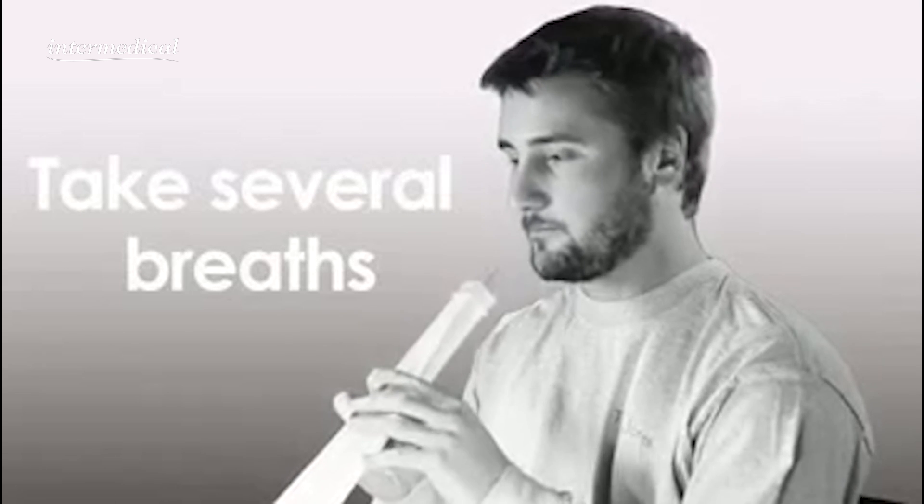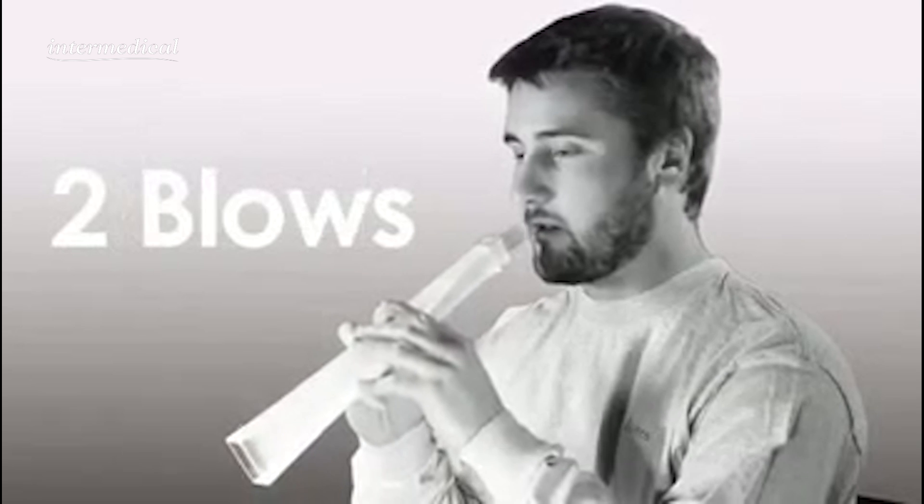Remove the mouthpiece from your mouth and quickly inhale again. Put the mouthpiece back in your mouth and blow gently through the Lung Flute. Remove the mouthpiece and wait five seconds, taking several normal breaths as you do. To achieve adequate results, your goal is twenty sets of two blows each.